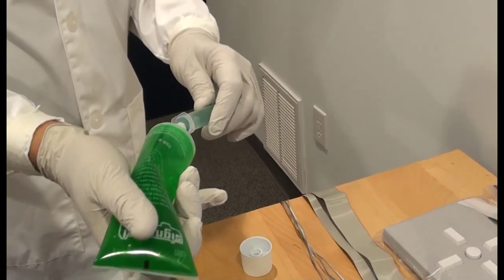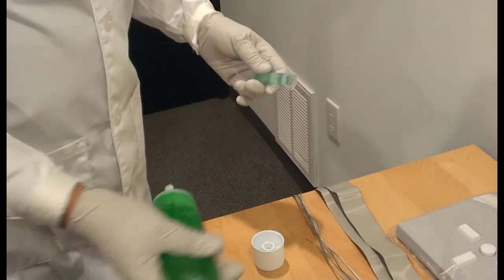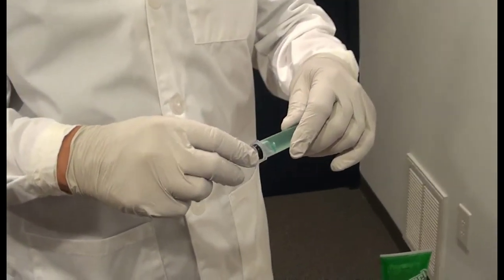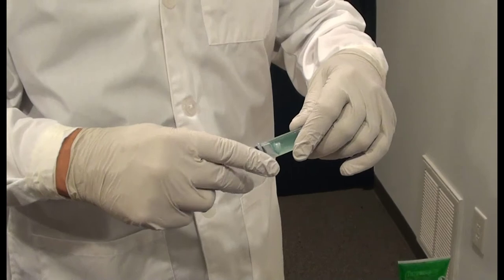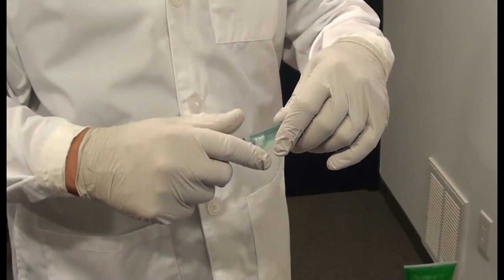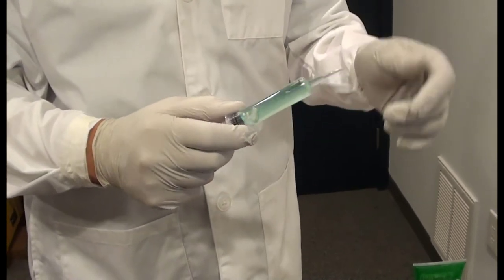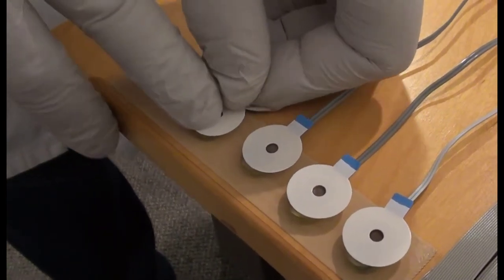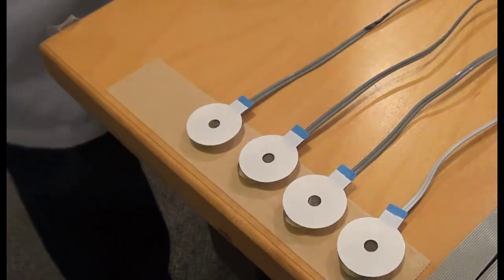Fill at least one 10cc syringe for a 64 channel recording. You may want to put 5cc each in two syringes if you will have a helper. Dividing up the task of applying gel and inserting electrodes is a practical way to accelerate setup. Working solo, a skilled operator should be able to set up 64 channels in 10 minutes from start to finish.